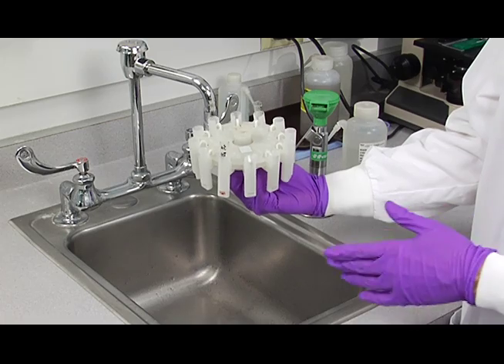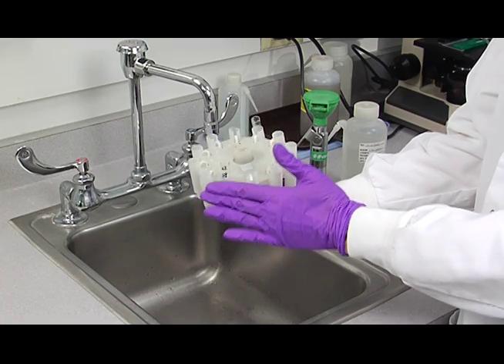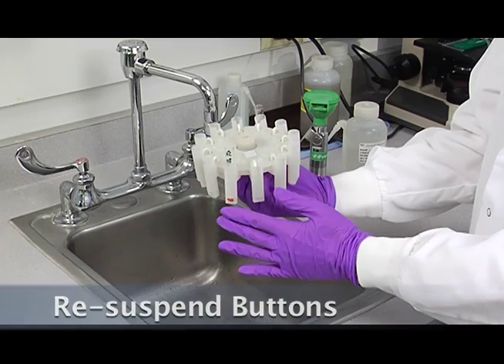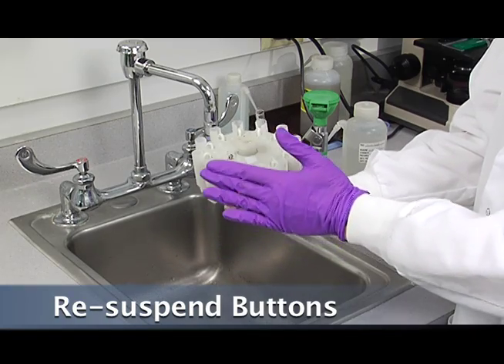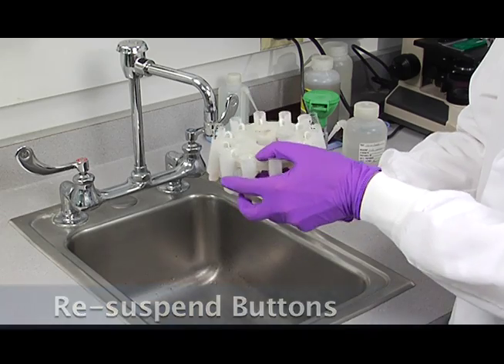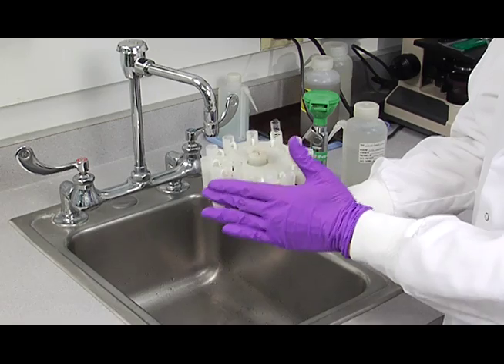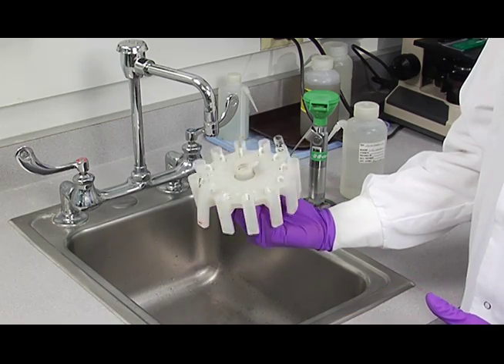And then you're going to re-suspend the buttons in the tubes by tapping them right here. Not down here, but right here. And then the other tube like this. And you can give them a little shake like this.